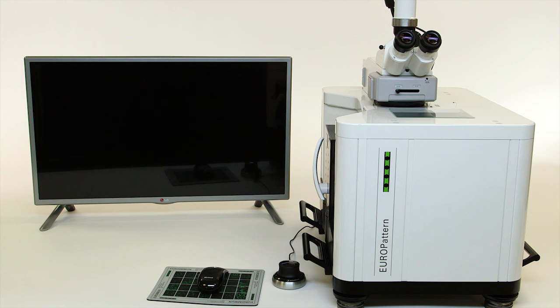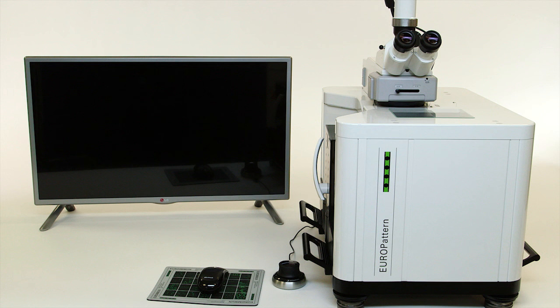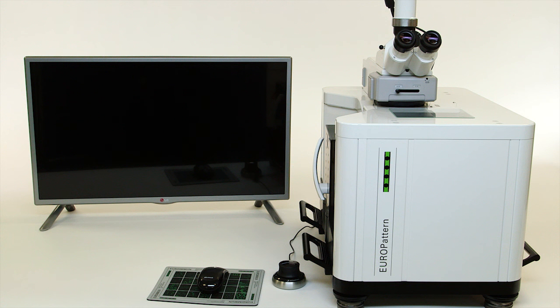Europattern is a sophisticated yet very user-friendly system that offers high-quality IFA evaluation while increasing efficiency, cost savings and time savings, helping you meet or exceed your laboratory's goals.